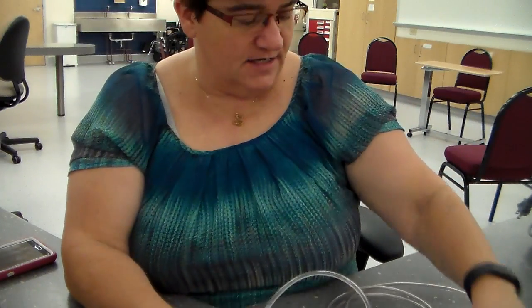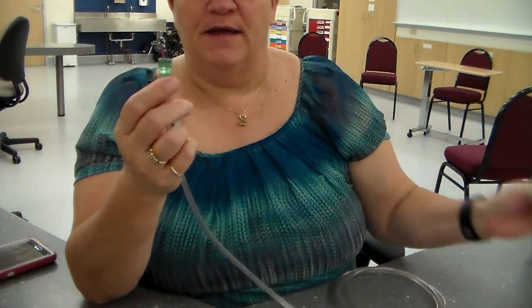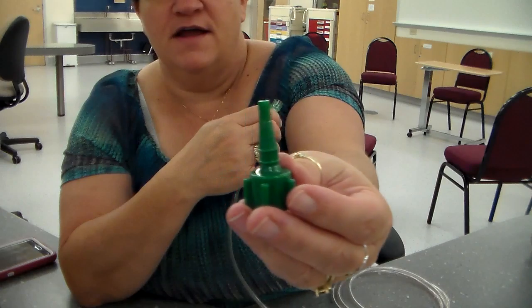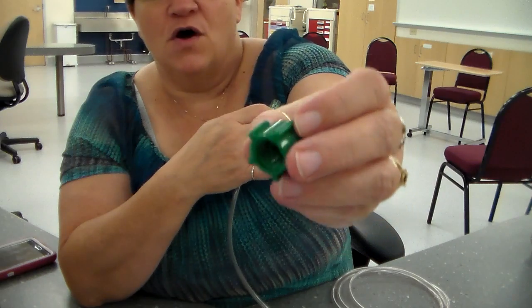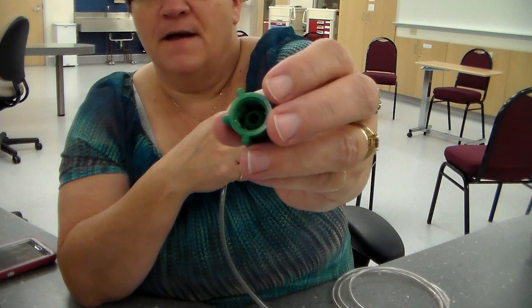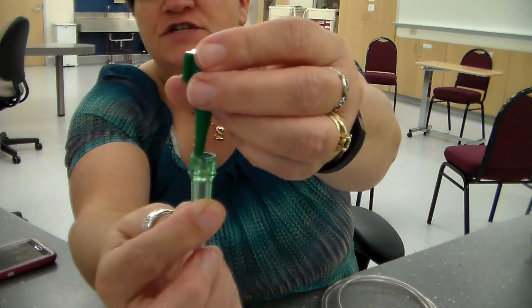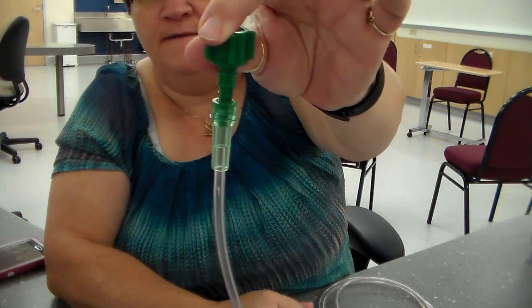In the facilities, in the hospitals, they will take this oxygen tubing and connect it to the air source in the hospital. This is called a Christmas tree, by the way. See this? Looks just like a Christmas tree, right? So if anybody ever tells you, go get a Christmas tree, you'll know what it means. This goes on the oxygen or the air outlets that are on the walls at the facilities. You screw it right on, and then the oxygen tubing would be connected to that. It's going to look like that.